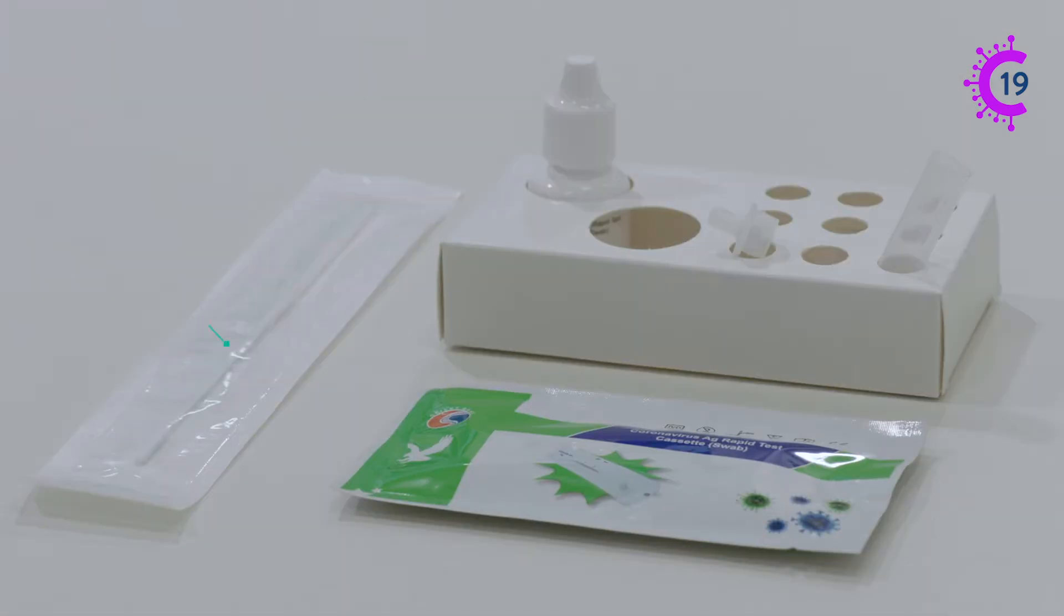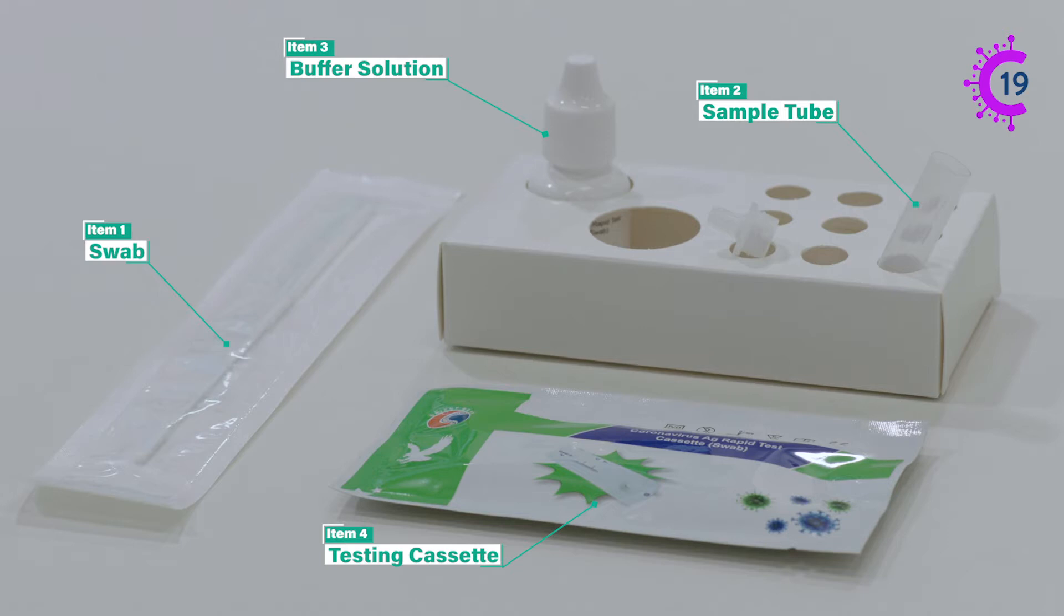The kit should contain a few different items: the swab, a sample tube with a lid, some buffer solution and the testing cassette. Make sure you don't open the cassette before you're ready to do the test as after an hour it will not be usable.